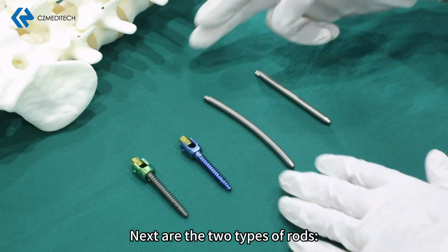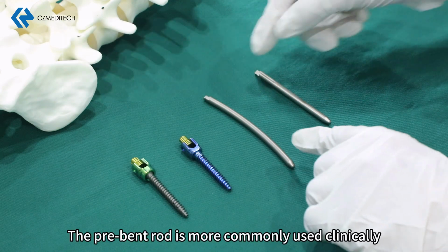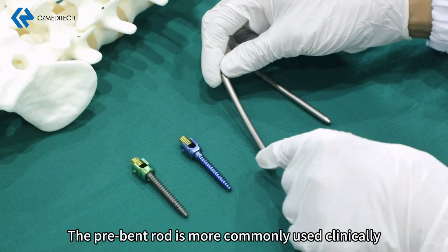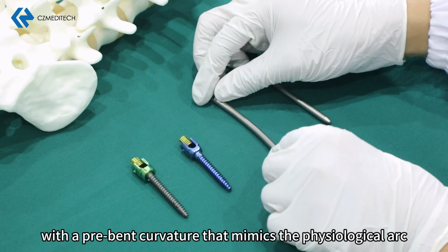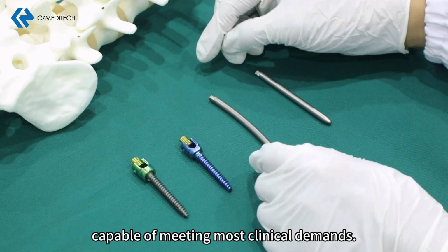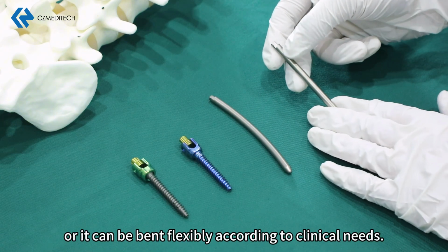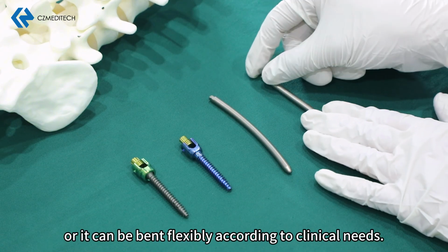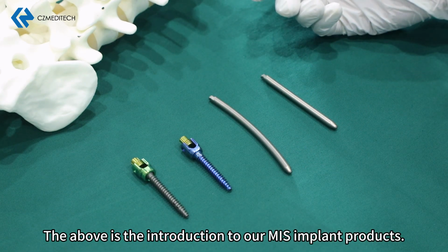Next are the 2 types of rods. One is a pre-bent rod, and the other is a straight rod. The pre-bent rod is more commonly used clinically, with a pre-bent curvature that mimics the physiological arc, capable of meeting most clinical demands. The straight rod can be used directly, or it can be bent flexibly according to clinical needs. The above is the introduction to our MIS implant products.